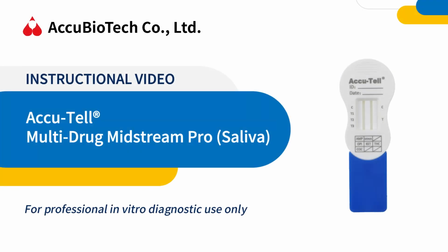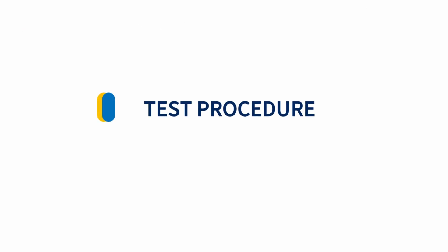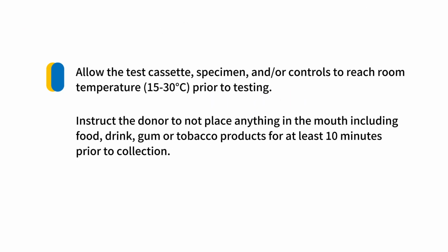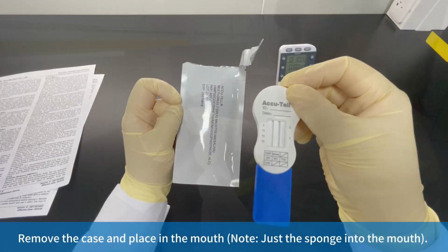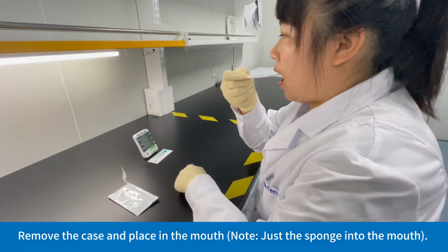Accu-Tell Multi-Drug Midstream Pro for saliva samples. Test procedure. Remove the test from the sealed pouch. Remove the cap and place it in the mouth.